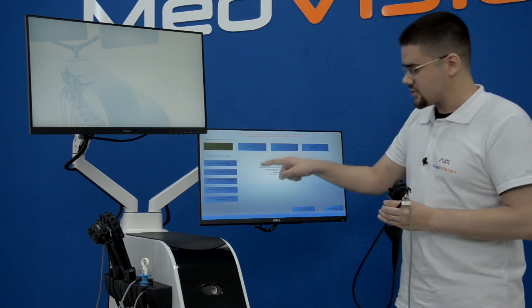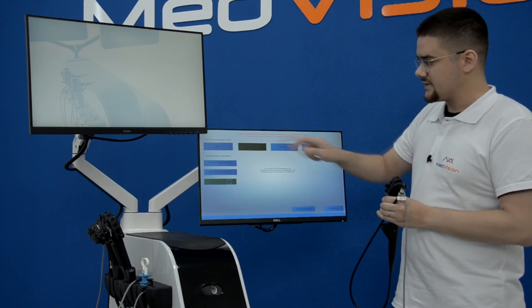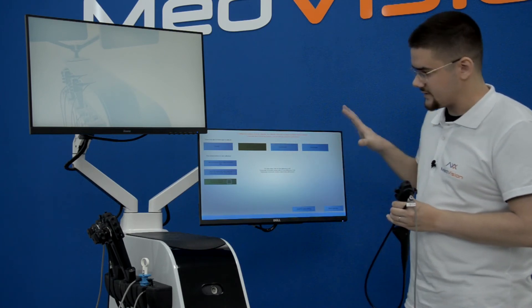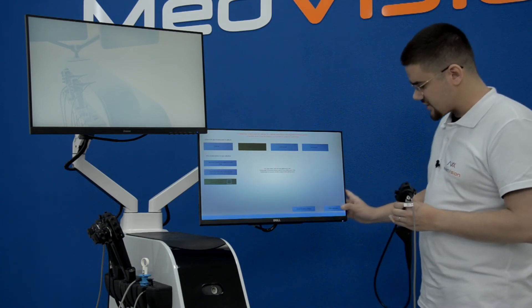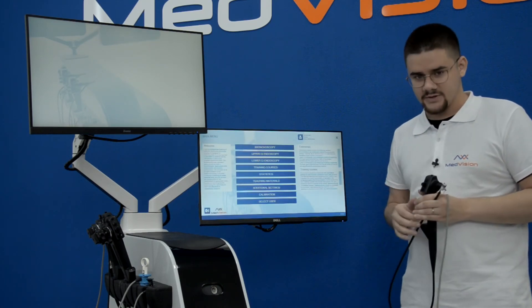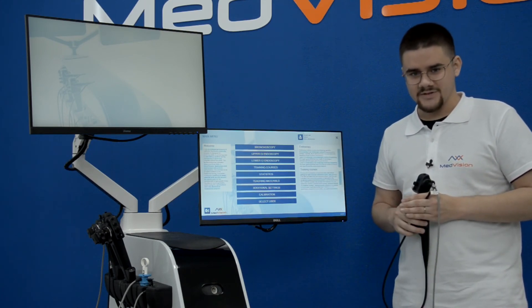This will show you the value of the parameter you are calibrating so you know it's picking up. You go through different tabs: general calibration settings, bronchoscopy, gastroscope, colonoscope — and here is where you calibrate. After you're done, press Finish Calibration. If you want to reset to factory settings, you do it here. All simulators come pre-calibrated, but during transportation or after a Windows update a recalibration may be required — and it's very simple to do.